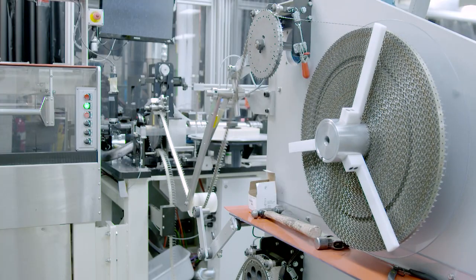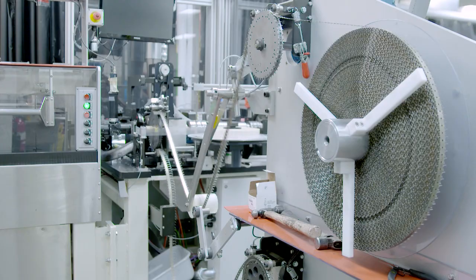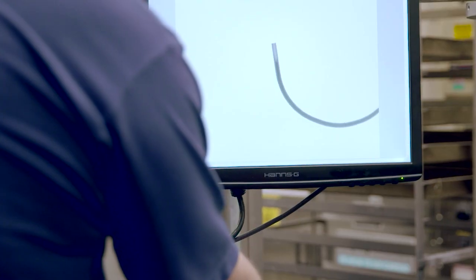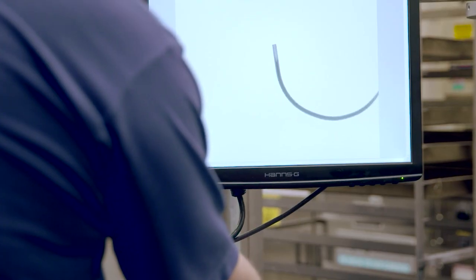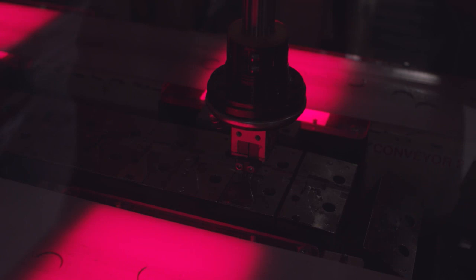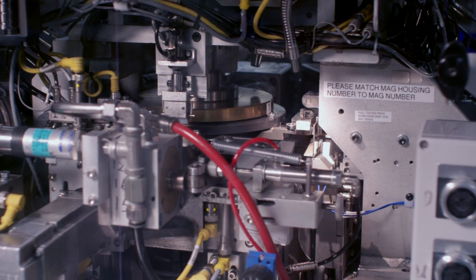Once the hole is drilled and deemed up to spec, the suture is inserted into the hole and the needle is crimped onto the thread with custom designed equipment.